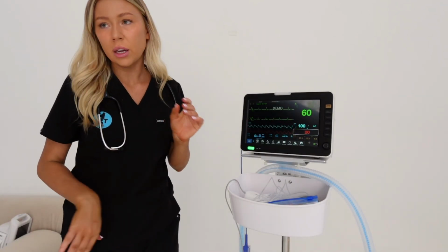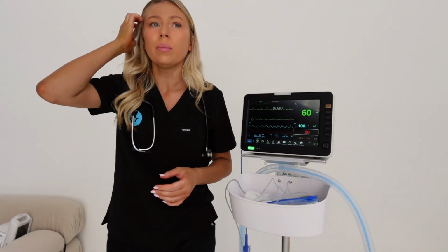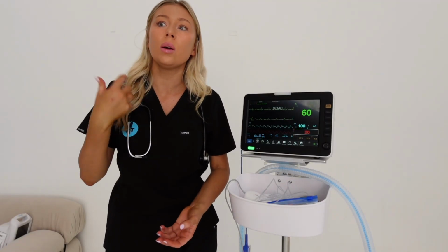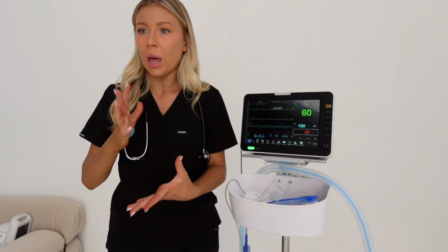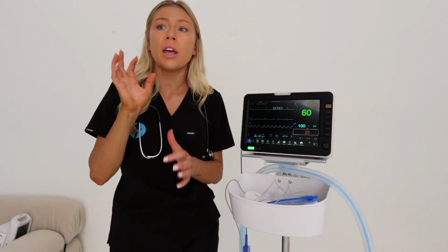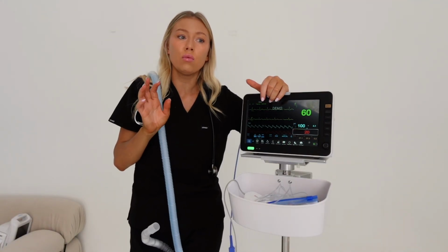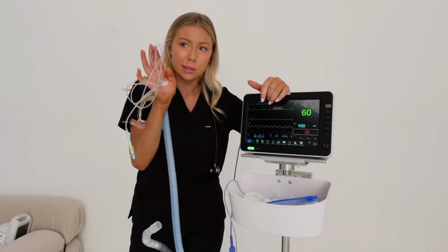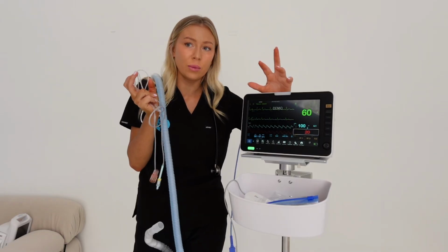Using an end-tidal CO2 component in your monitoring equipment is also really important when it comes to making sure that your patient's being tubed properly, that the endotracheal tube is sitting where you want it to sit. If the readings are constantly all out, it might be that the tube has been inserted too far or not enough and it might need re-intubation. If you do have a really low reading constantly, it might mean that there is a hole in this line. So swap it over to another and test if you're still getting the same reading.